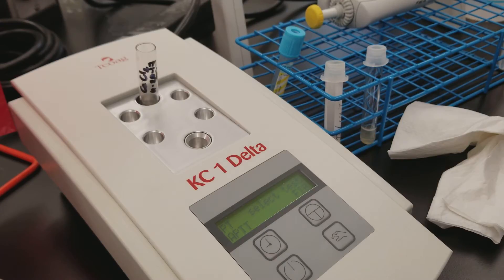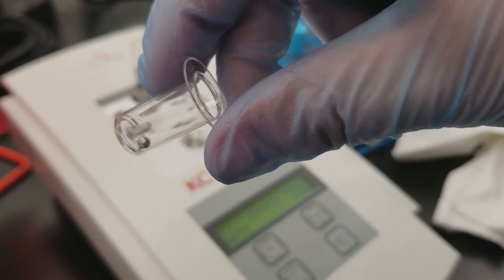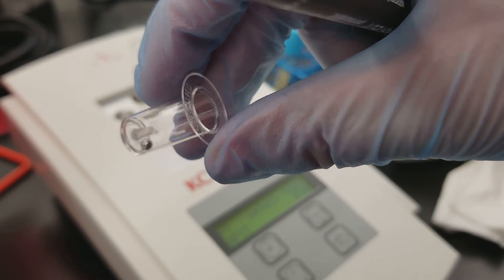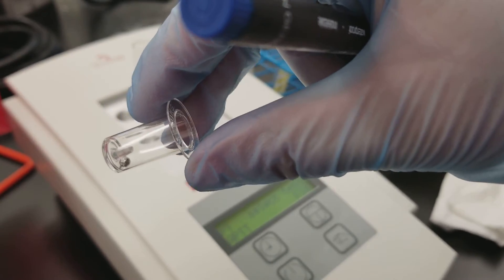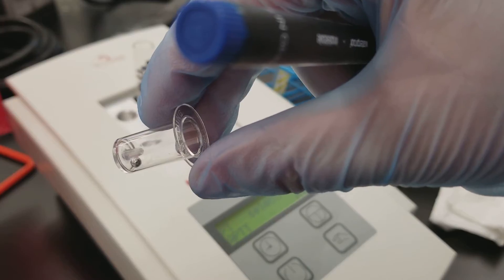So what we're going to do today is talk about how this actually differs from every other analyzer that you see out there. Coagulation testing is very special because it uses a physical type of methodology in order to detect the coagulation that's happening in the patient specimens.